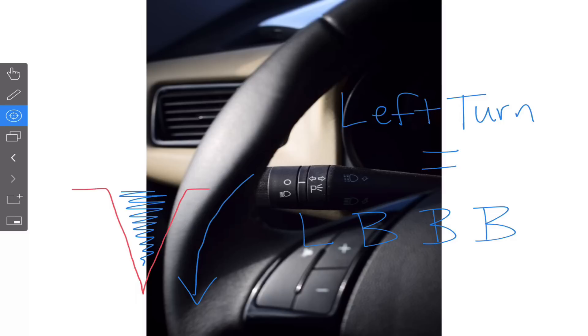So some last points on bundle branch blocks before we close. We need to be able to quickly recognize these things as they can mask other ECG changes. And we always remember the saying that says treat the patient, not the monitor. And this is a perfect case for that point.